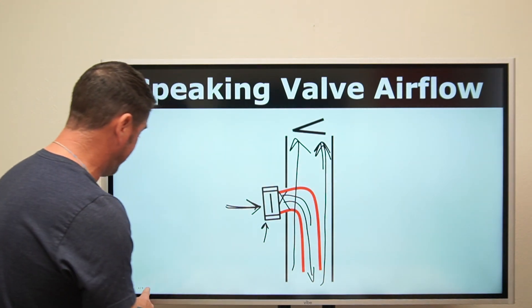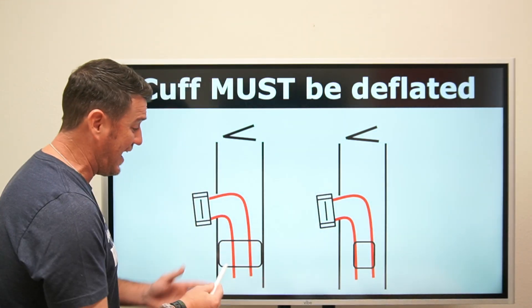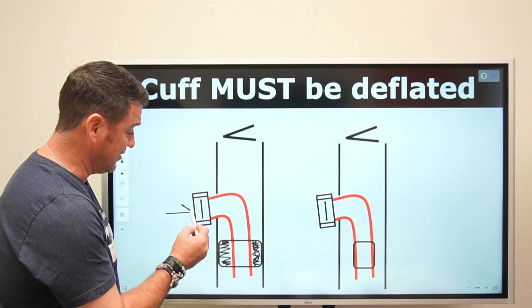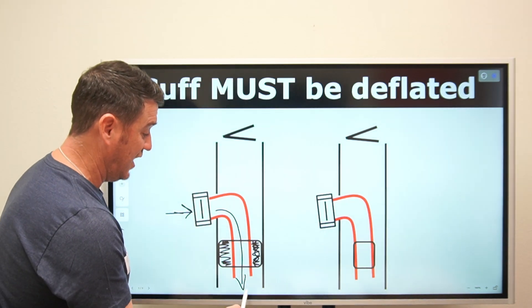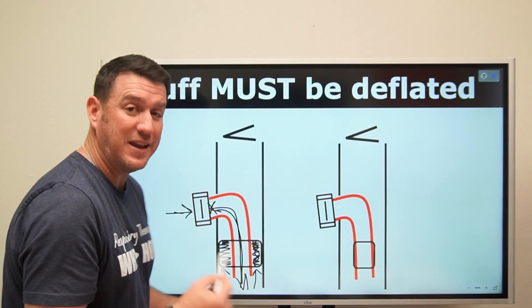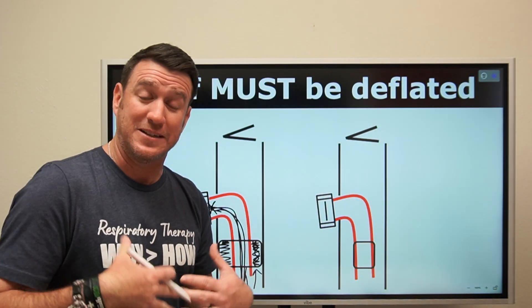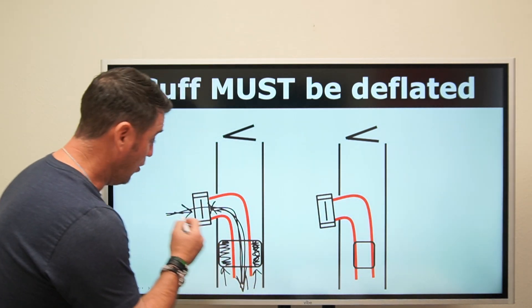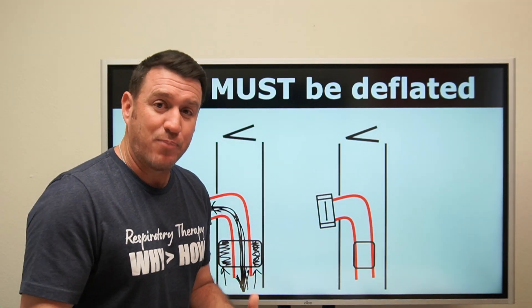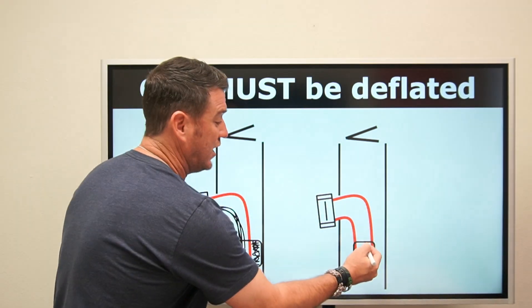The things to remember here are very important. That illustration shows a tracheostomy tube without a cuff. But when the cuff is inflated, when the patient breathes in air goes to the alveolar units, but when gas tries to come back out it can't go back out through the speaking valve, and it can't go out through the upper airway either because the cuff is blocking it. Every single breath becomes trapped within the alveolar units. Try taking as many breaths as you can without exhaling — that's what it's like with a speaking valve on with an inflated cuff.